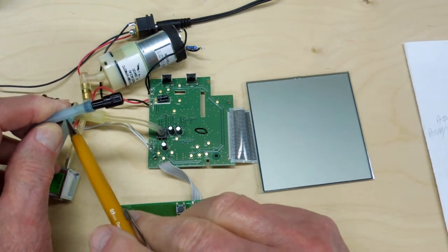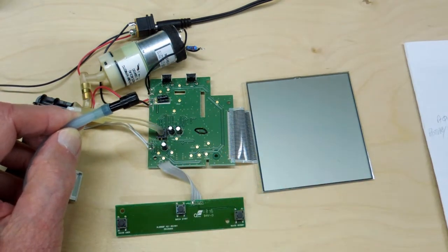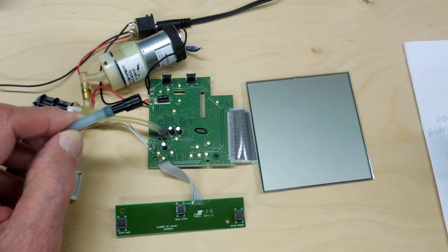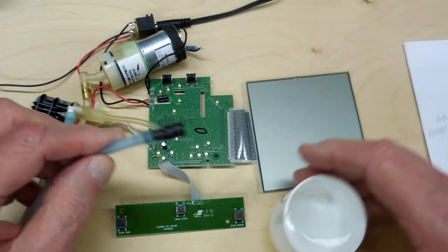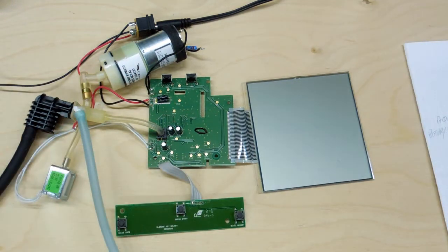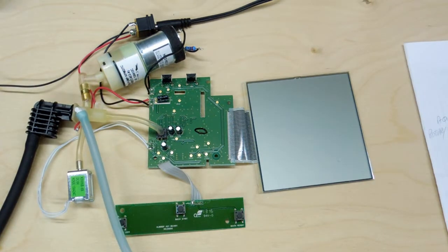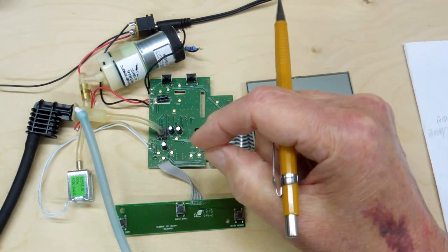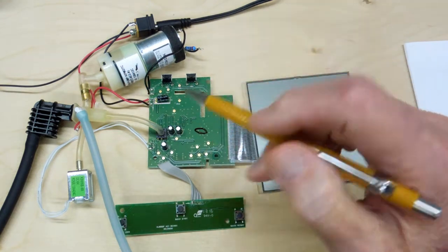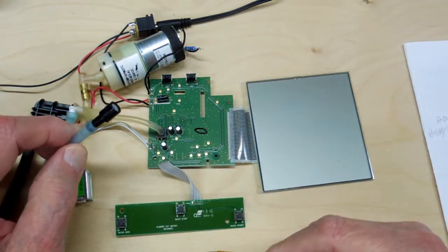This little thing is a very small orifice. It allows air to bleed off at a consistent rate. I'm going to demonstrate that in a minute by putting it in water so we can see air bubbling through. When your doctor uses a pressure cuff, he's looking at a gauge and opening and closing a valve to bleed the air off at a constant rate — and that's exactly what this does.